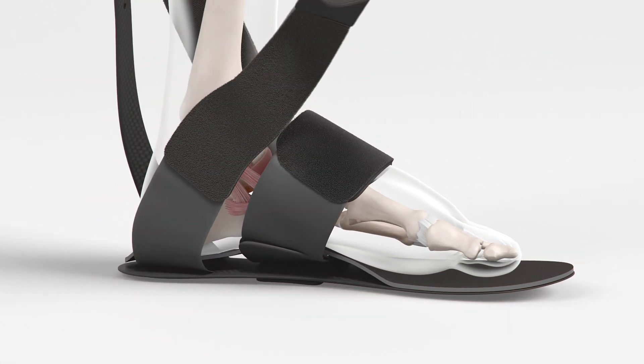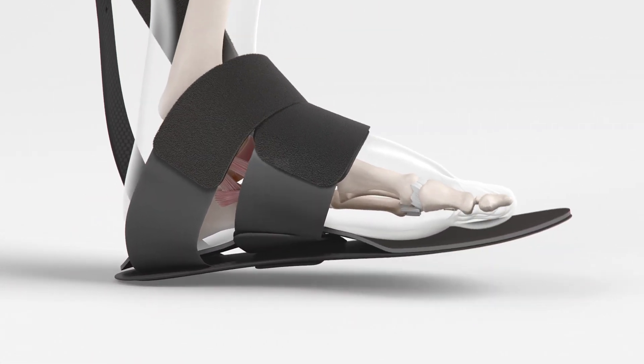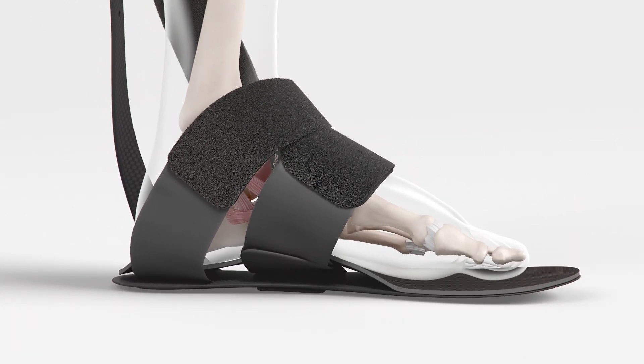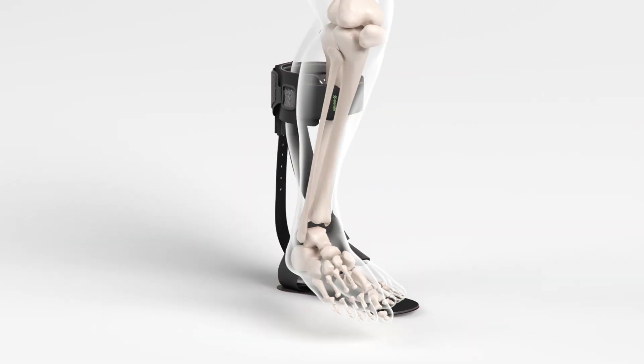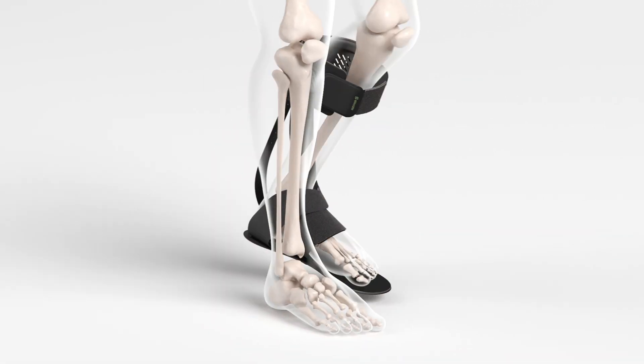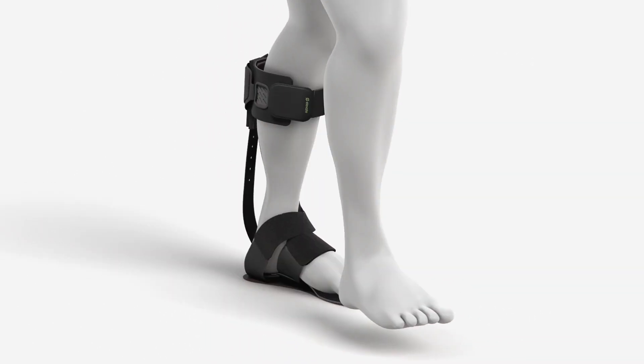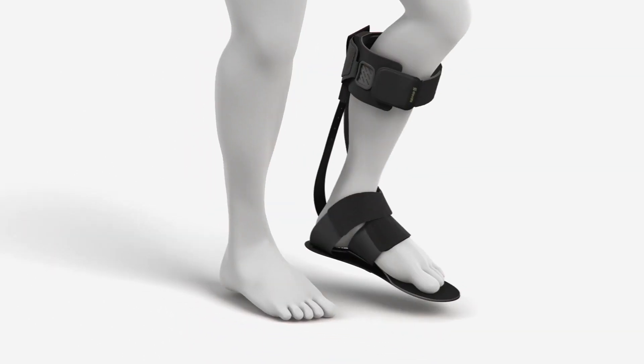It functions similarly to ligaments and muscular attachments, providing responsive and corrective dynamic stability and proprioception. Paired with our carbon fiber AFO, the patient's foot and ankle are normalized in all planes, allowing the patient to return to their most natural gait.